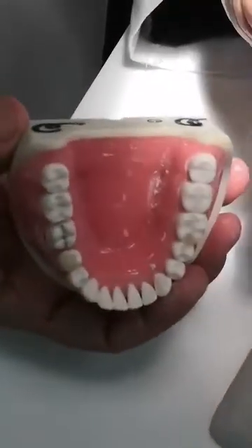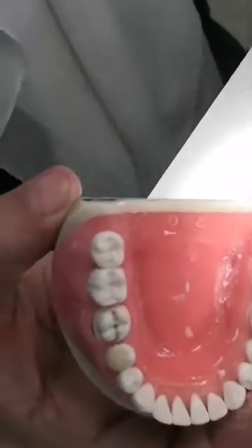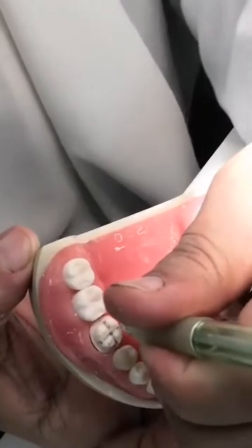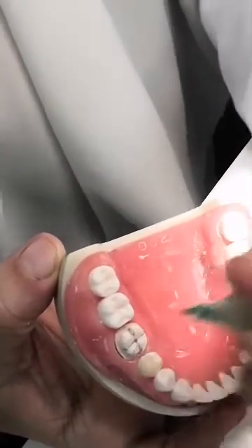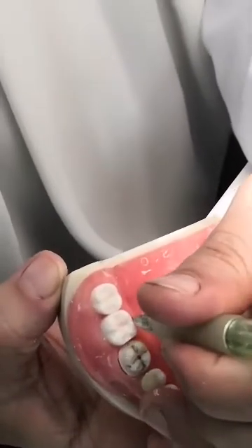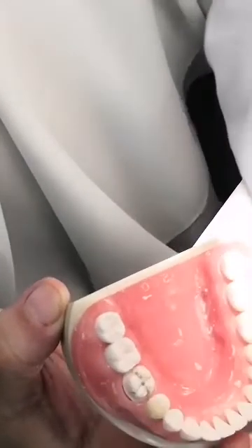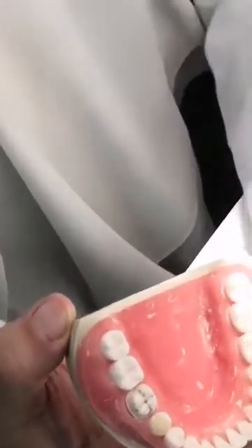The same thing doesn't apply to the lingual. Can you see it? Lingually it's almost flat. You don't go through the groove, because if I want to keep the preparation thickness and I don't do this groove — now this groove is present originally — that means if I don't do it and I mimic it, the crown material here will be very thin or it will be over-bulging.